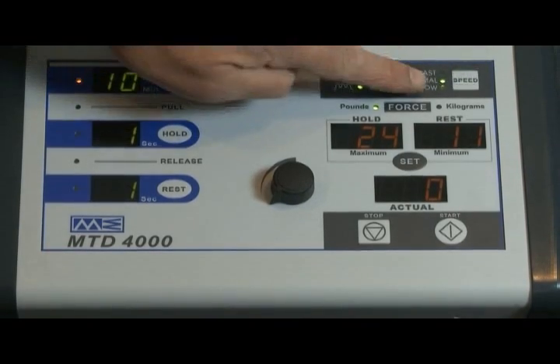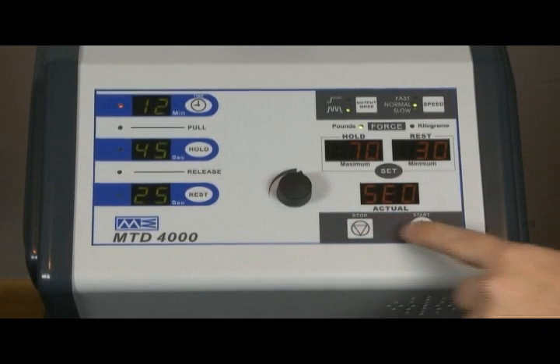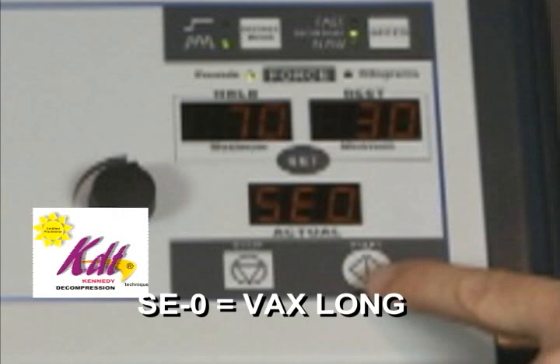To select pre-saved KDT protocols, rapidly press the stop button 5 to 7 times until SE0 appears in the actual force window. SE0 represents the VAX long lumbar protocol as taught in the Kennedy decompression technique.